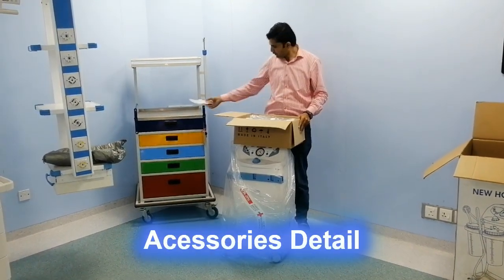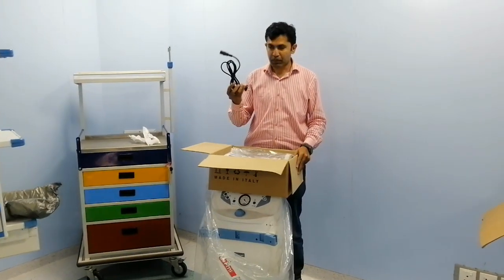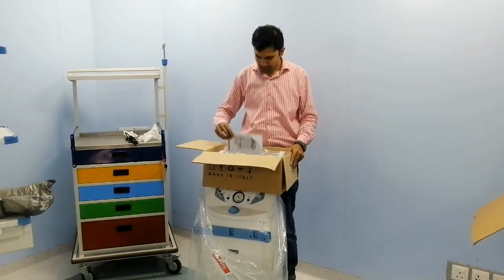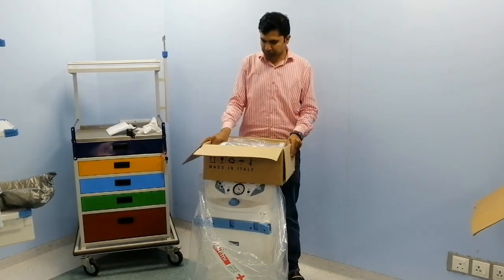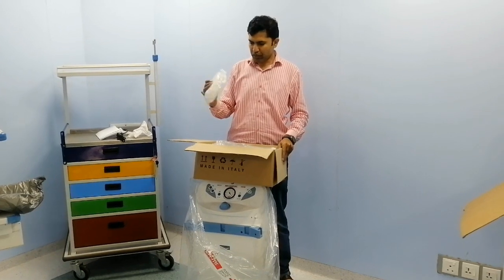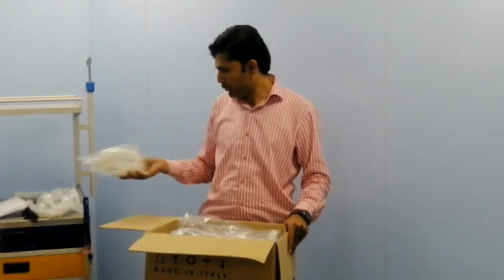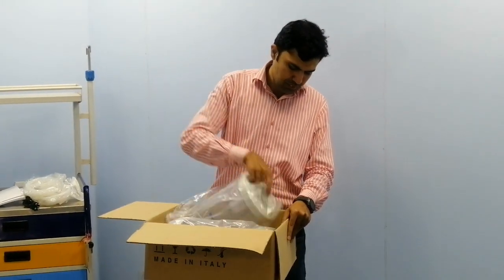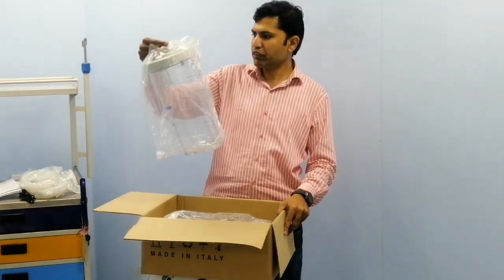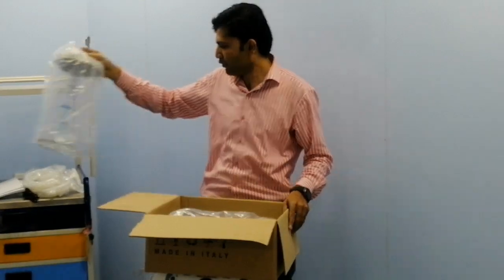This is a filter, power cable, manual, and pipe for the bottle — actually two pipes. There are also two jars, which are approximately 5000 ml, or 5 liters each.